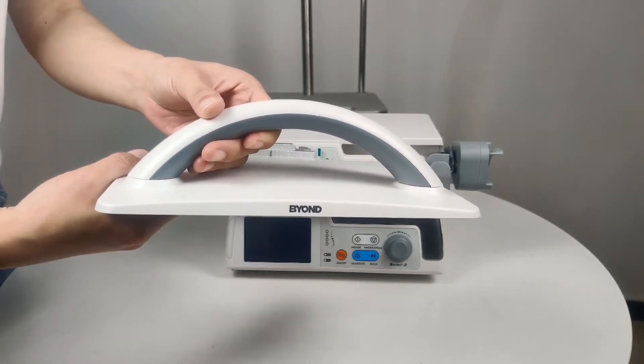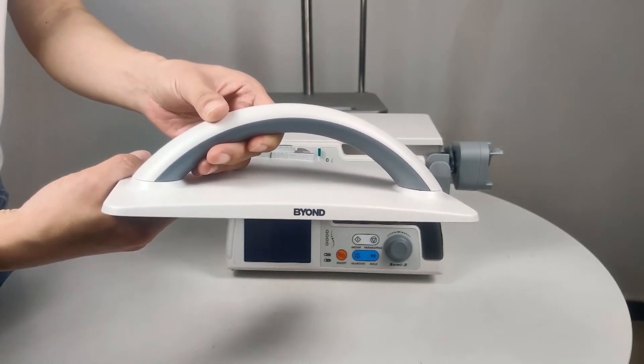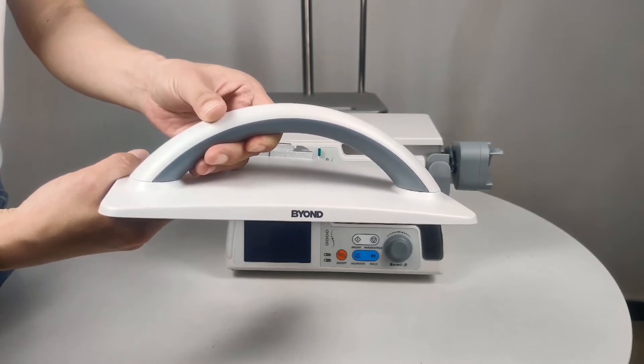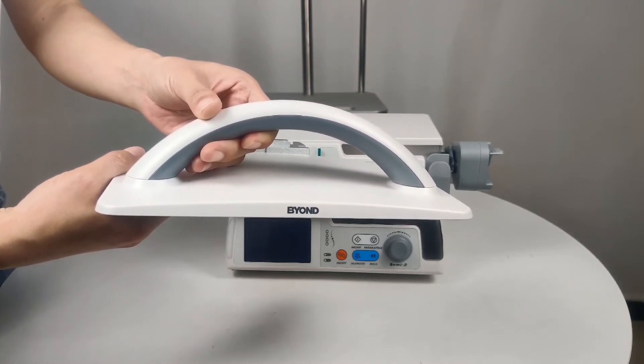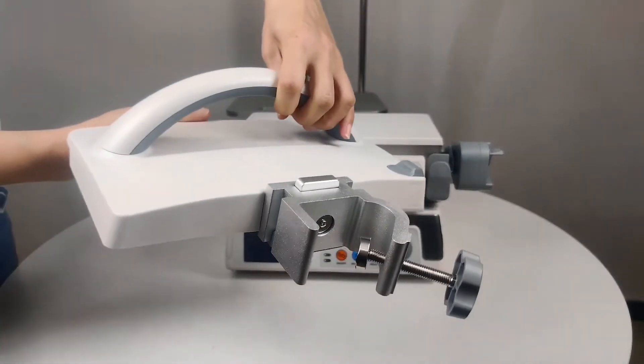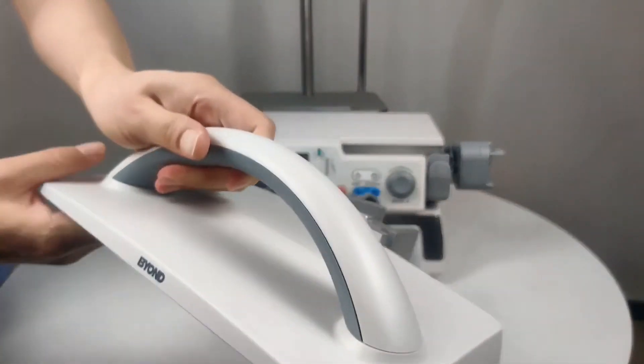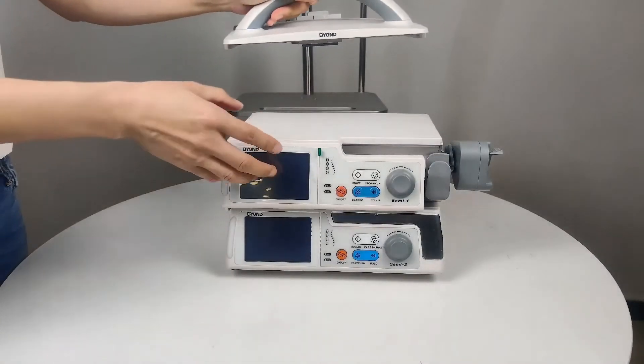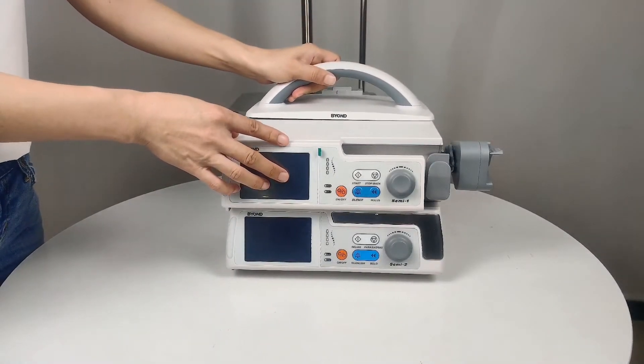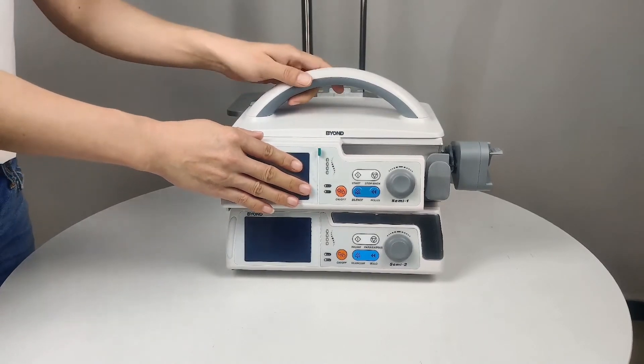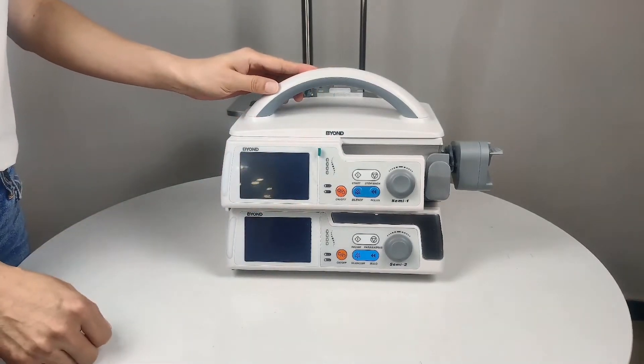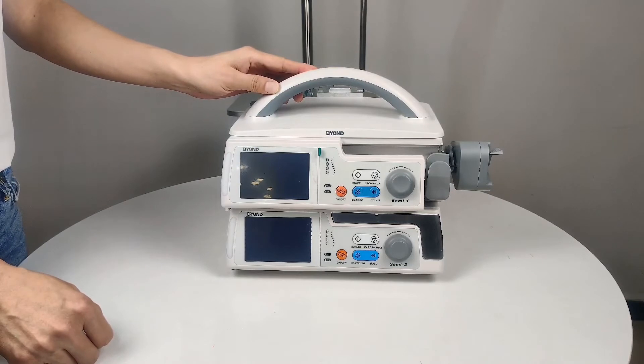You will need a handle if you need to shift to another place, next to another ward or ambulance car. We have this simple handle. We can fix the simple handle using the guide slot of the top pump. You will also hear a sound when locked well.